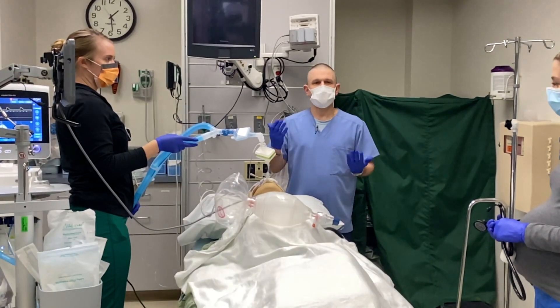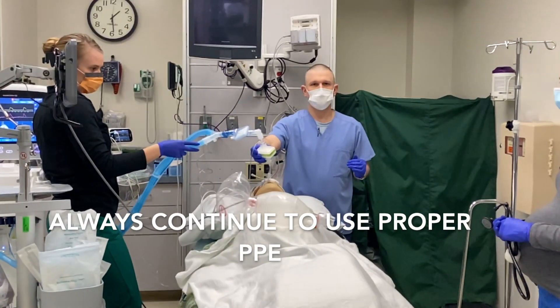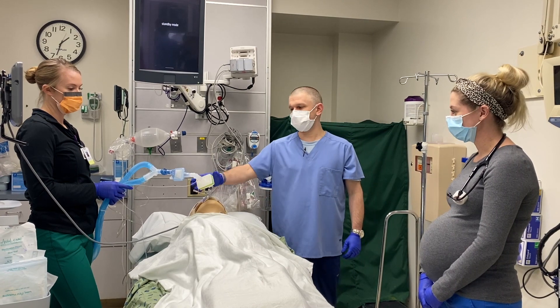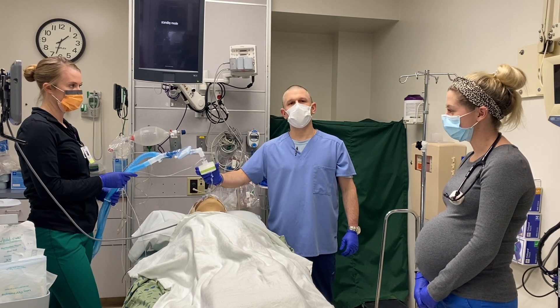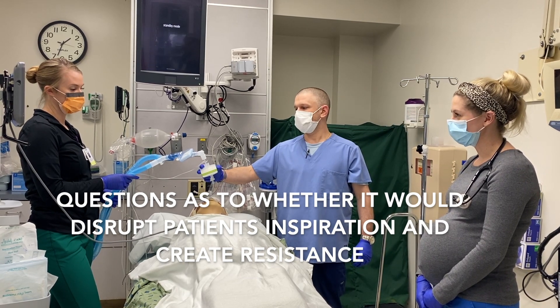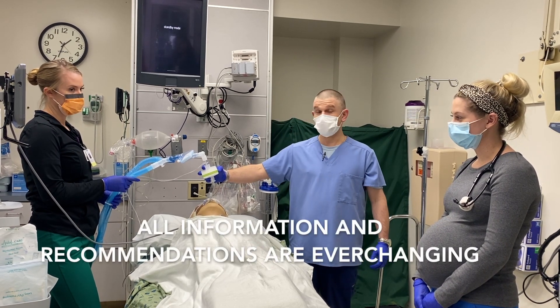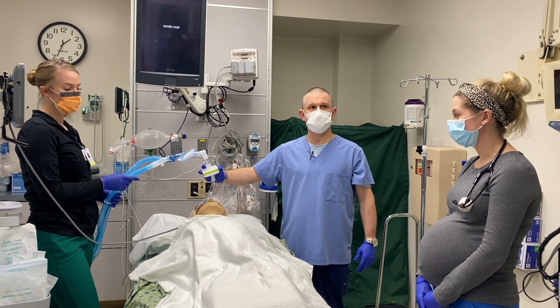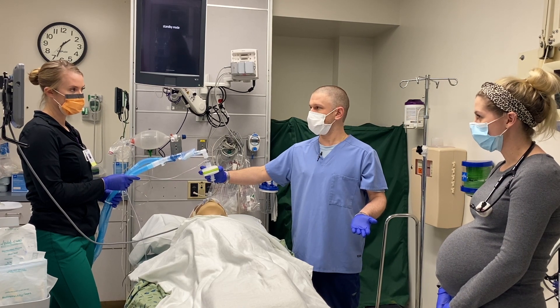We still have to take maximum precautions with PPE, but all of us are a lot safer now that we don't have to worry about droplets in the air. An important question raised by respiratory therapy is whether to keep the viral filter on the endotracheal tube while the patient is on the ventilator. I have no idea whether this is going to impede the patient's inspiratory flow or start setting off peak pressure alarms. For now we're going to play it by ear. If we're not setting off pressure alarms and the patient is getting adequate volume, we should probably keep it as such.